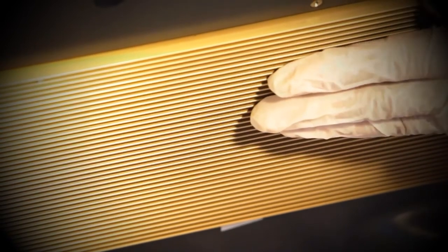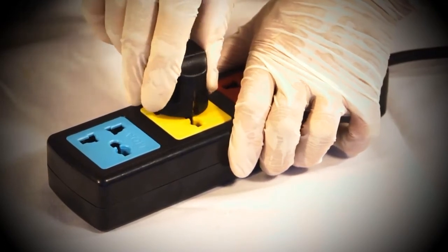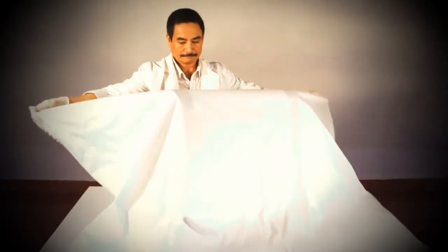This is because the heat is released from the bottom of the unit. When the Firefly is not in use, it is important to keep it covered to avoid dust collection and accidental damage.